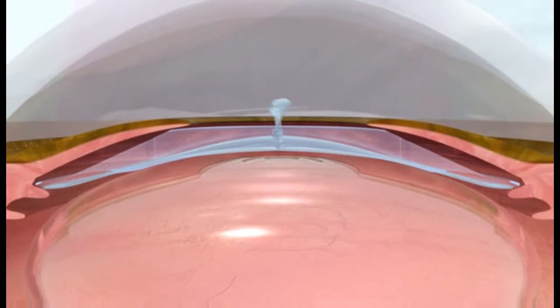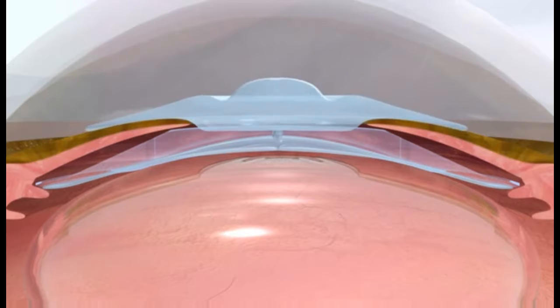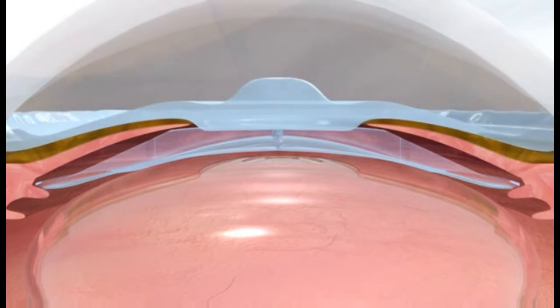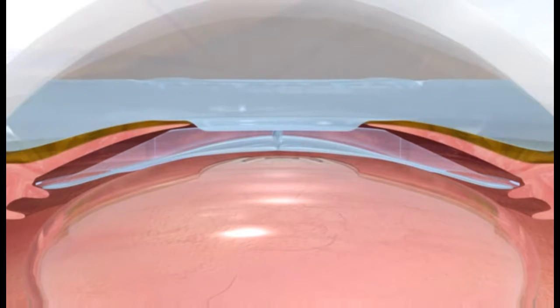The port's unique design helps the aqueous maintain a more natural path through the center of the pupil. By eliminating PIs, you can offer your patients enhanced convenience and comfort by reducing surgical steps previously required for Visian ICL surgery.